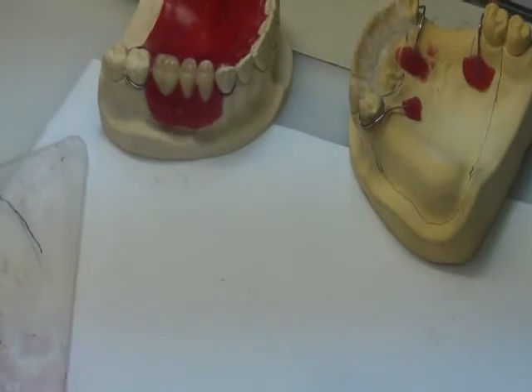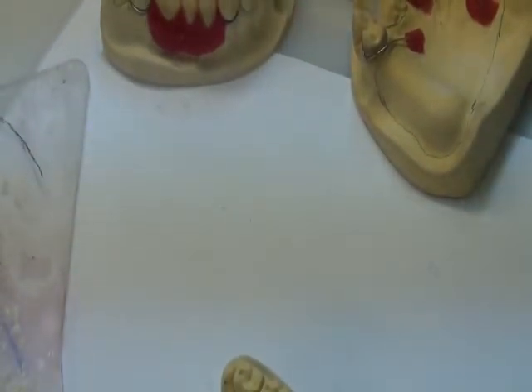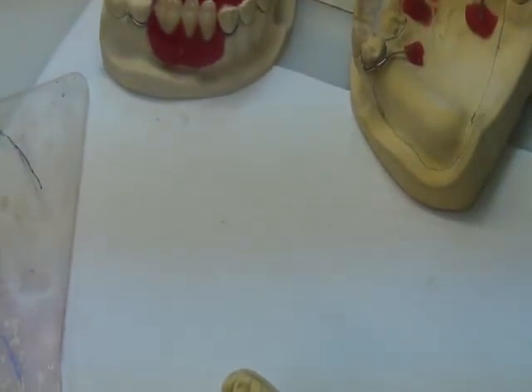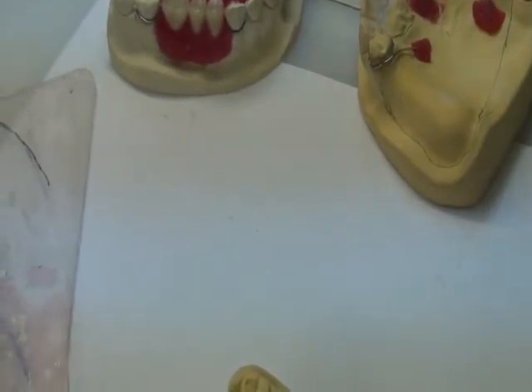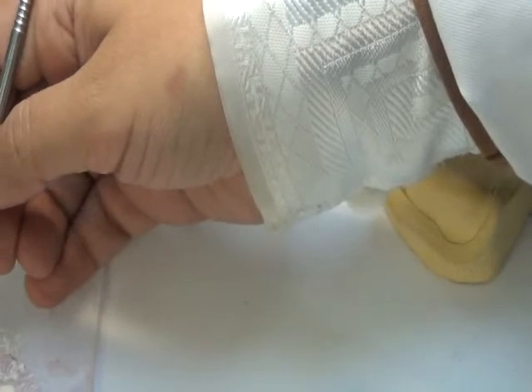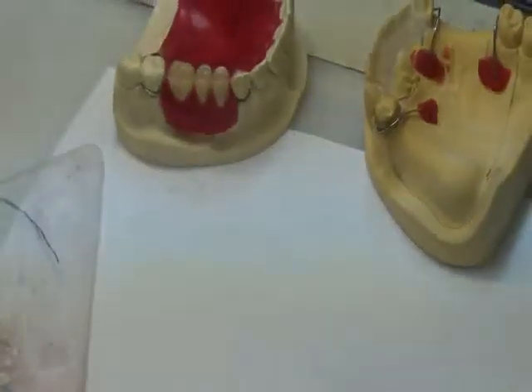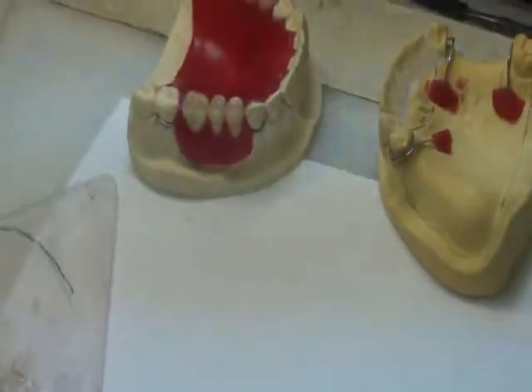Okay, Bismillah ar-Rahman ar-Rahim. In this part of the lab, we are going to speak about preparation of the cast for the setting of the teeth. Remember that in the first lab, before wire bending, we wanted you to make the wire bending in a manner that is away from the tooth and away from the blockage material.